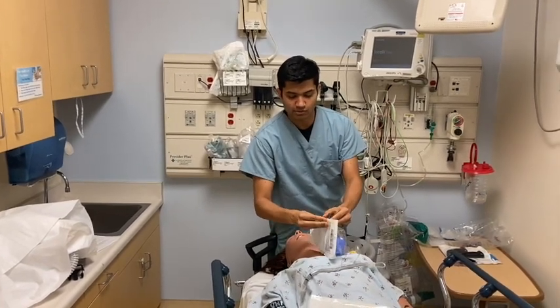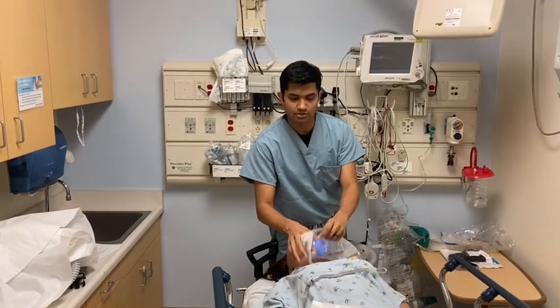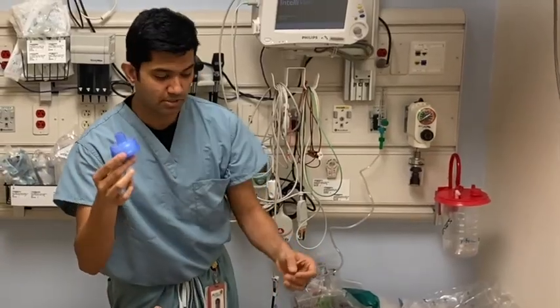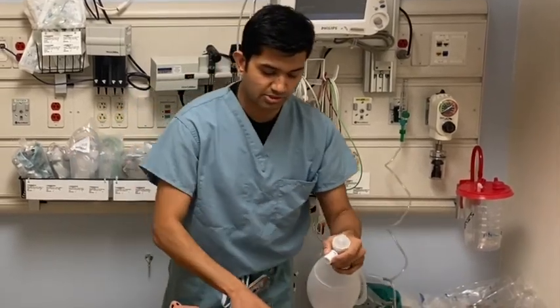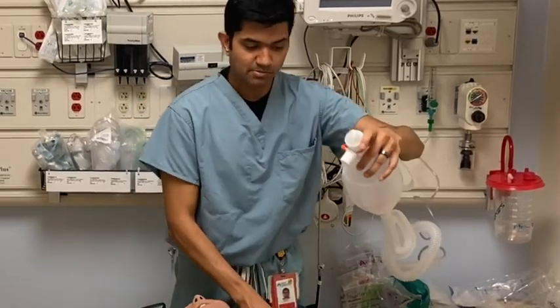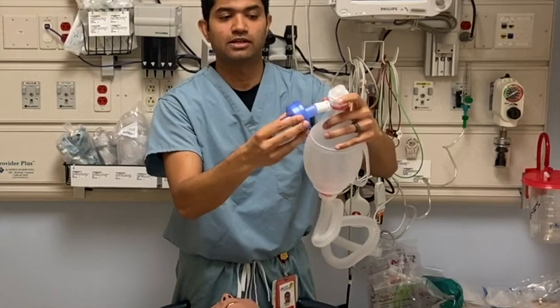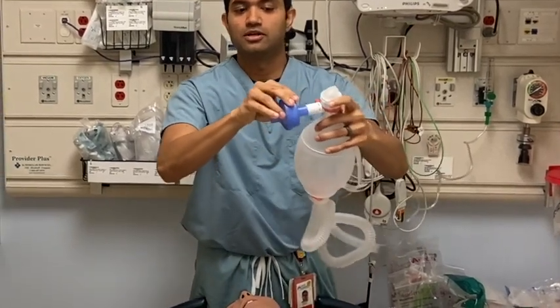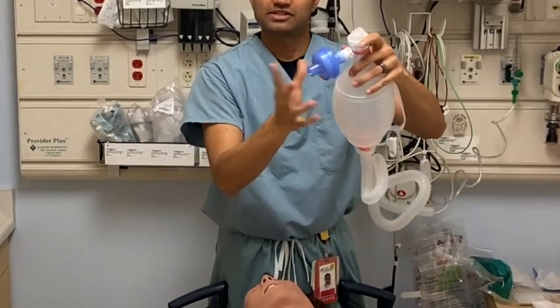The way you want this series of devices to be connected, you want to open up the viral filter. That's going to be the very first filter. Most of the time the R2 respiratory therapist should be doing this. However, there are instances in which this is not being done correctly, so you want to have familiarity with where this connects. As opposed to your face mask being connected over here, you would actually be connecting the viral filter, and it goes only one way. If I try to put it the wrong way, it's not going to go. So you connect that, and that's going to be your first outlet.